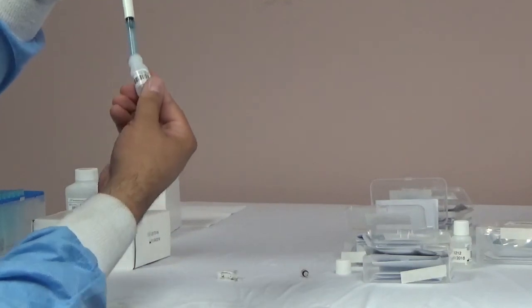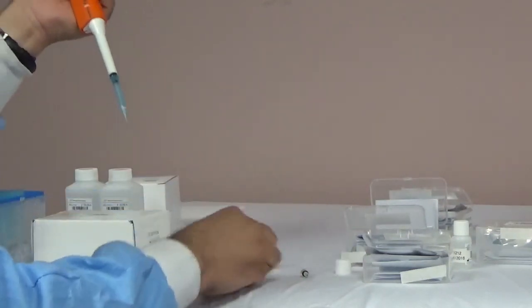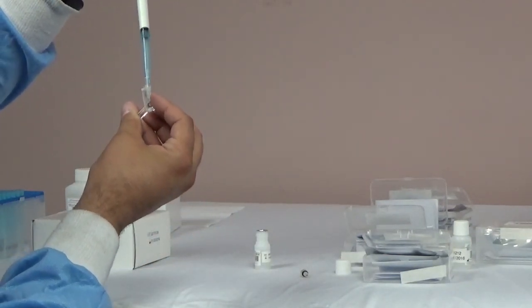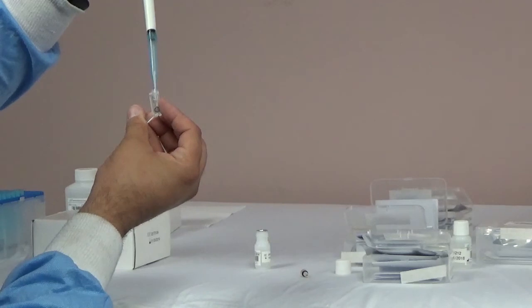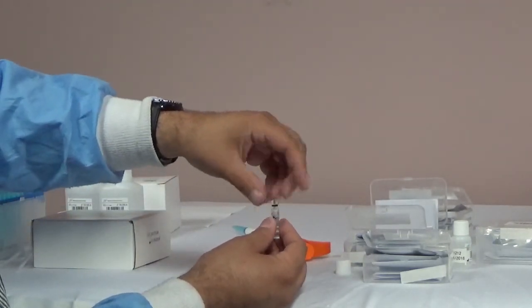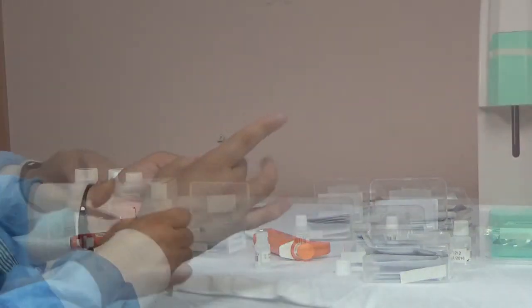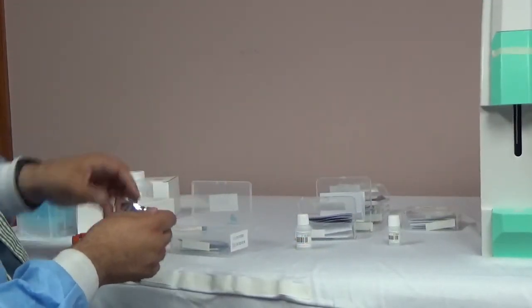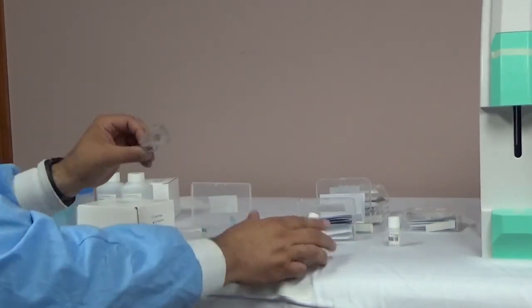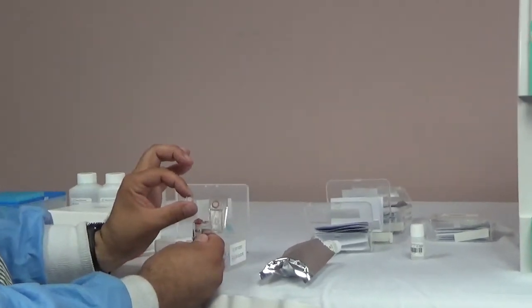The fill line should be about halfway between the letters. Replace the cap of the electrode by hand — do not use any tools. After you have replaced the cap, hold the electrode from the top and flick the bottom to remove any air bubbles. Make sure that when you fill the electrodes, you use the correct solution: ISE refill solution for the ISE electrodes and reference refill solution for the reference electrode. Also use a different pipette if you switch between the two types of solutions.